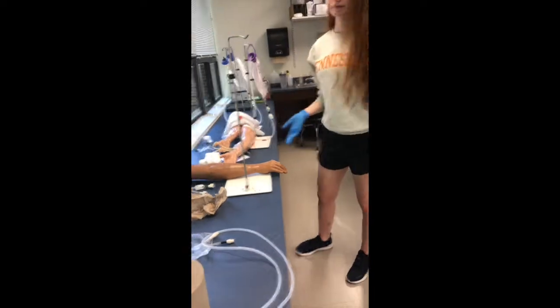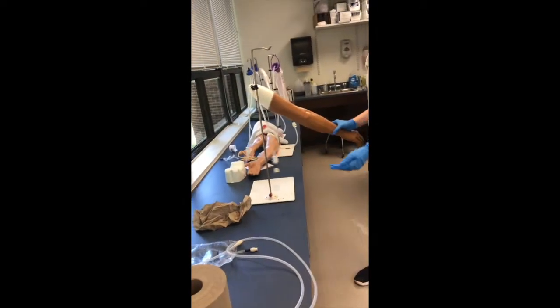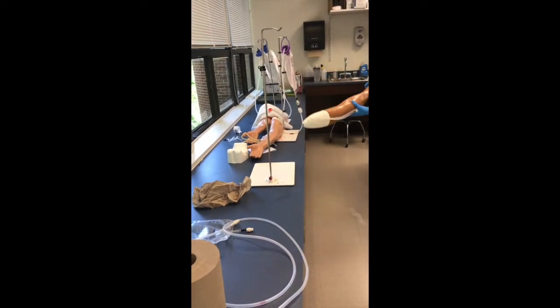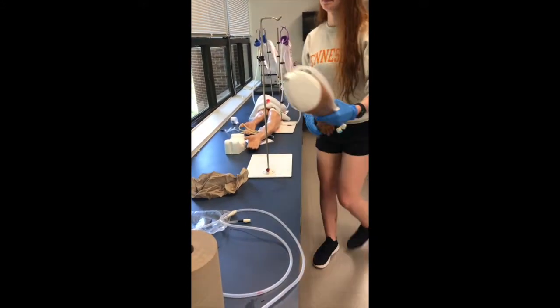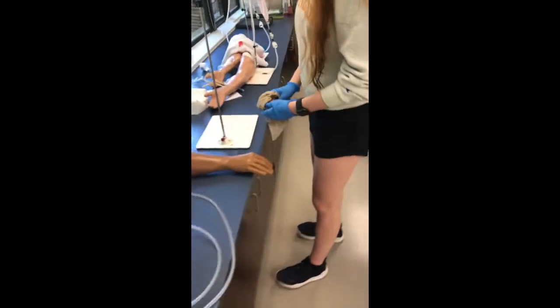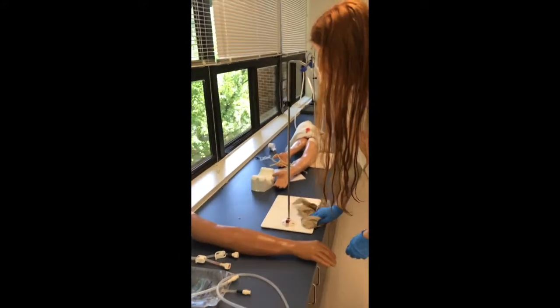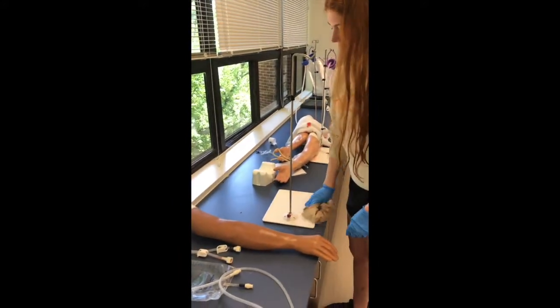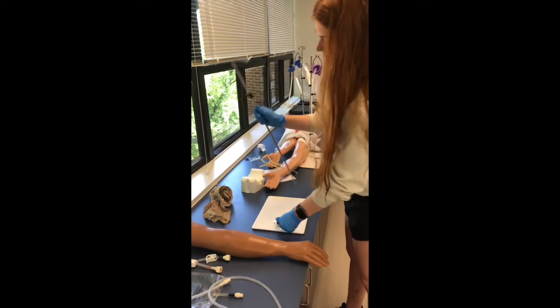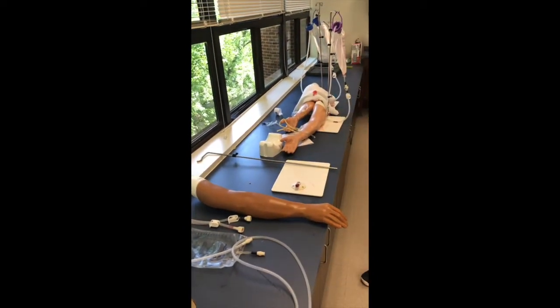That's how you drain them. Now for breaking it down — all you have to do is put all these pieces away in the cabinets in front of you. Stack up the bags, stack up the arms, and the little white rests — stack those up too. The pole that's connected to the white base actually comes out, so go ahead and take that out and lay it flat. All of that just goes in the cabinets, and then move on to the next arm.